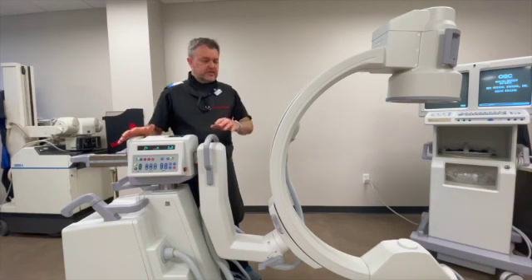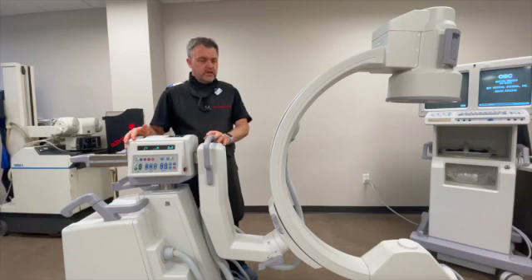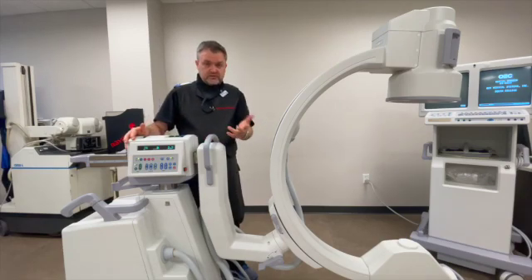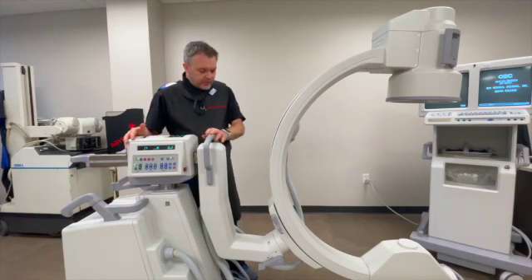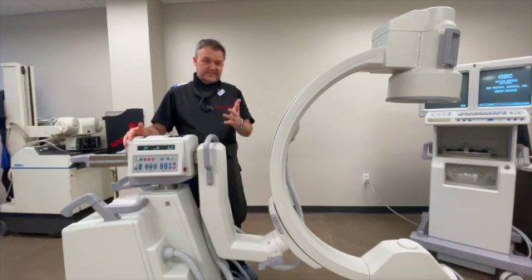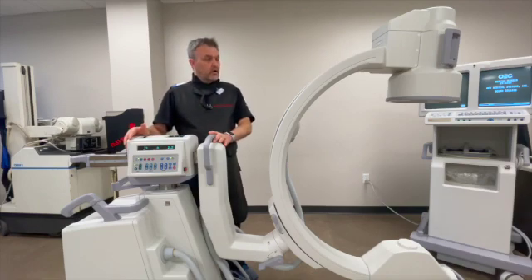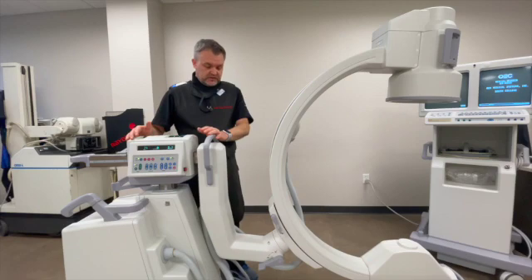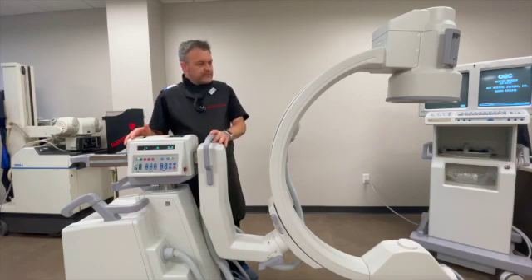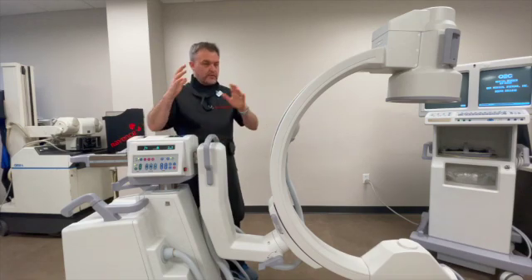If your facility has a GE machine, chances are it has the SmartView feature. It's not on all of their lineup, but it's on a majority — your 9800s, 9900s, and OEC Elites. It's a very functional lock for pelvic cases and acetabulum. It's not really a lock for the novice — you may hear it called the 'Never Lever,' or when being onboarded they may say 'we don't touch that one.' It has the opportunity to get you in a lot of trouble if you don't understand how the image is working.